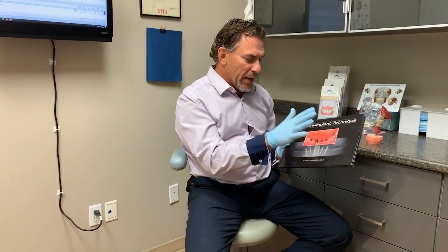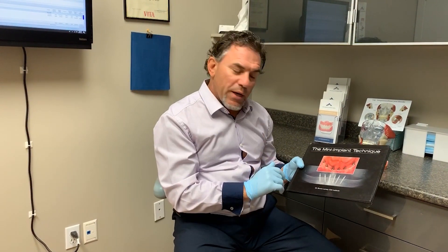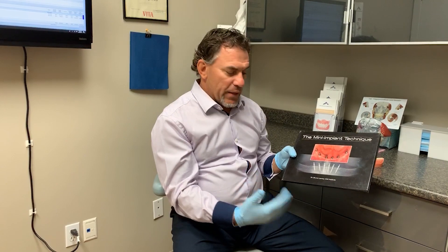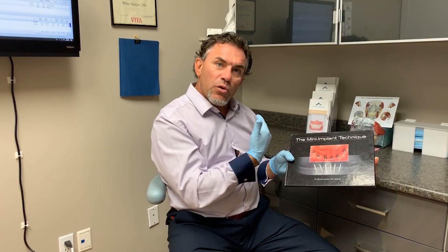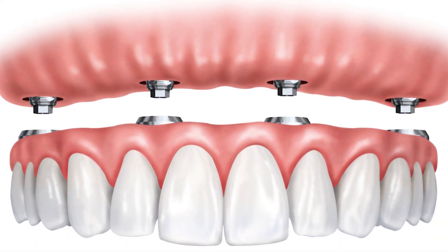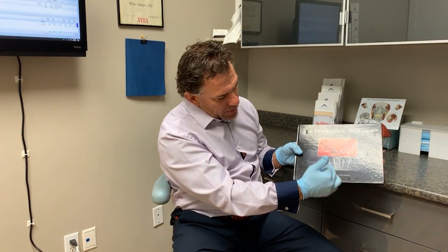One system is called the Mini Implant Technique. We have a local dentist here, Dr. Jared Ord, who does many implants and does a great job with them. Mini implants are a one-stage implant, typically placed in one series. The patient goes in, gets local freezing, and the implant is put right through the tissue into the bone — you can see it in the model here, giving us an idea of how the implants look as they're placed.